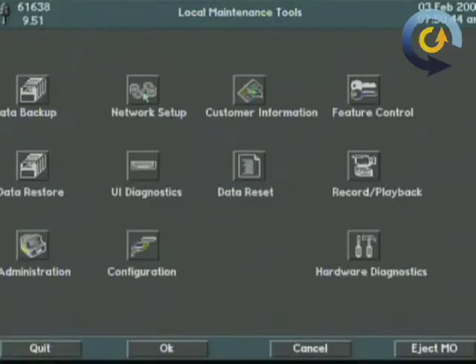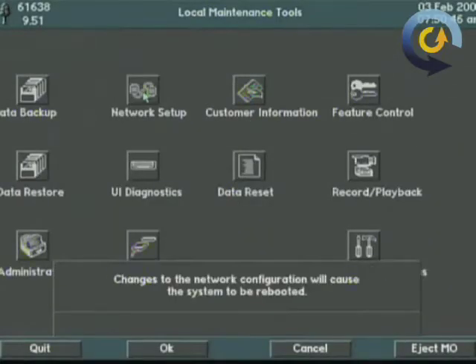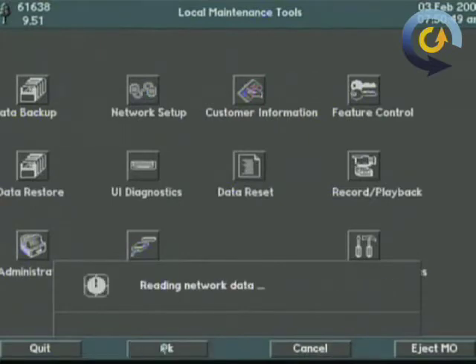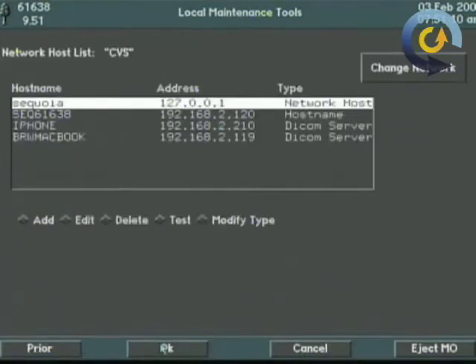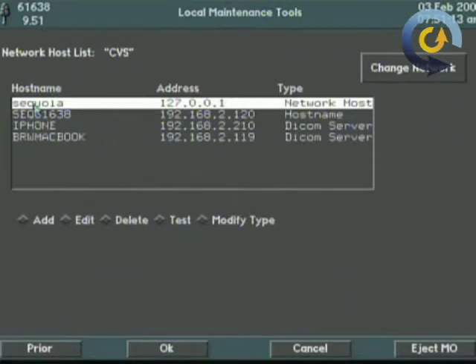It'll open up this screen, we'll hit network setup. It'll give you some housekeeping chores like warning you if you make changes it'll take a reboot. I'm not going to go over those. Here's the DICOM setup menu and we've got four items on here right now.